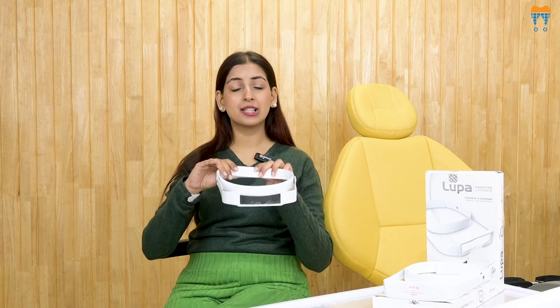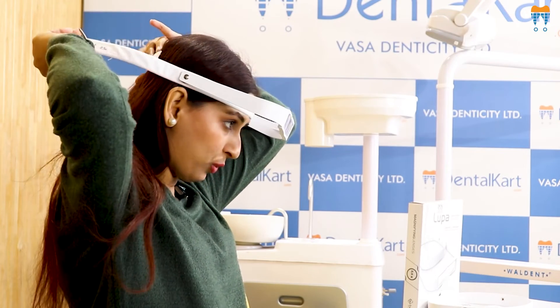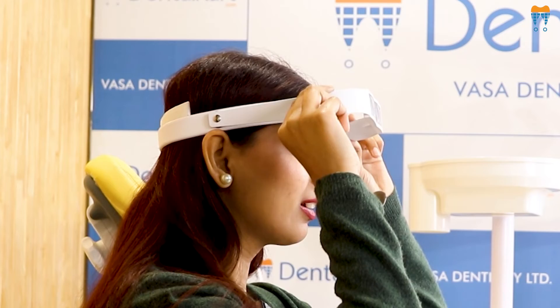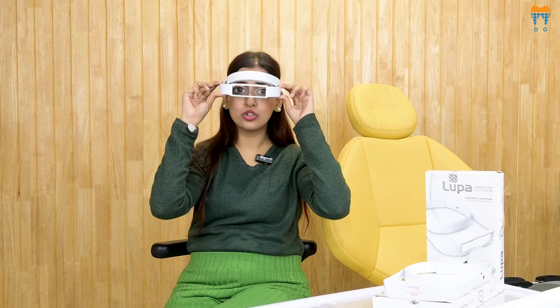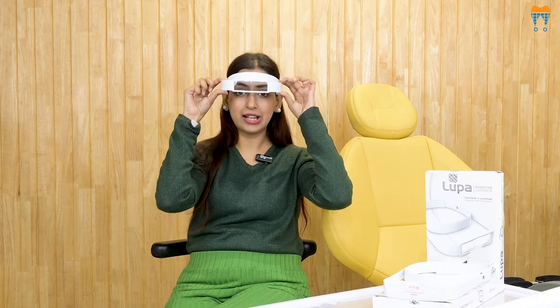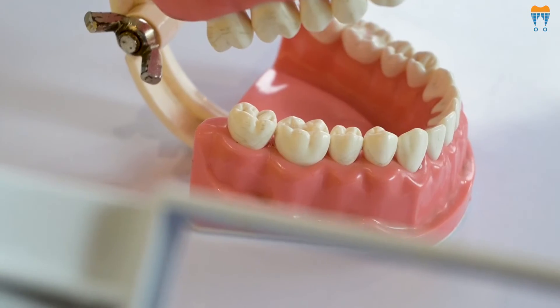Now let's look at the loop I have today. This is a 2.5x loop and it is a band-type loop — you can attach it onto your head like this. Even if you have a powered lens, you can easily use this kind of loop. It has an adjusting band so you can adjust it according to your eyesight, patient position, and focal length. Here's an example for 2.5x and also one for 3.5x magnification.